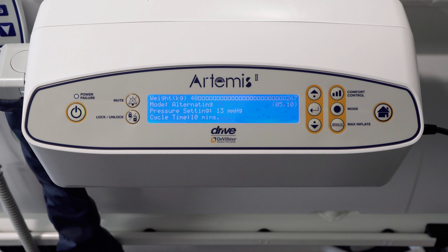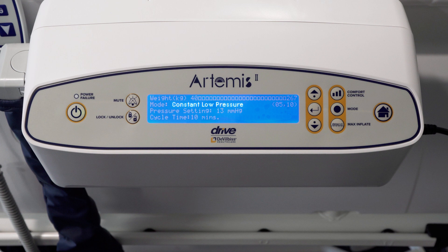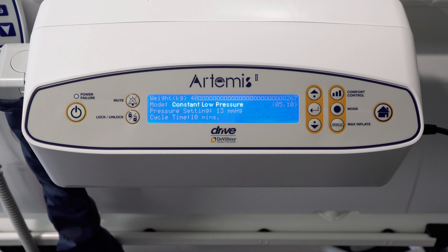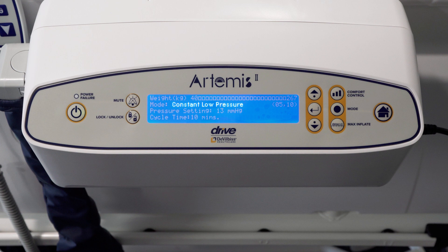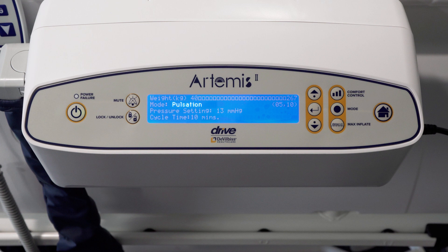Patients can be prescribed both alternating or constant low pressure depending on their needs and the clinical judgment of the carer. The constant low pressure allows the mattress to contour to the patient's body, which reduces contact pressure by increasing the surface area over which the patient is supported.